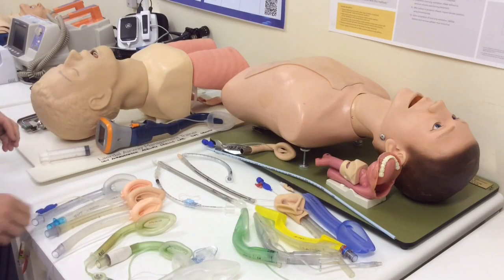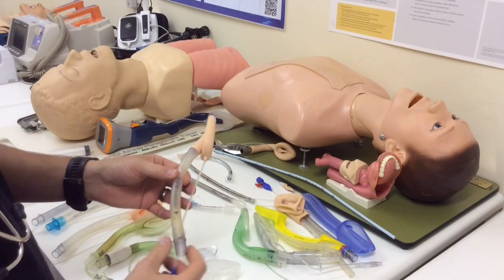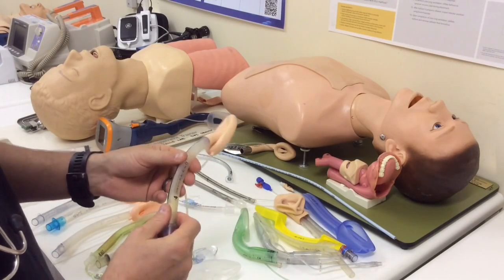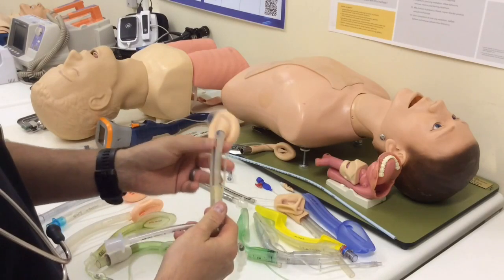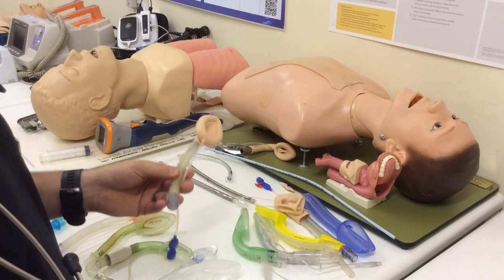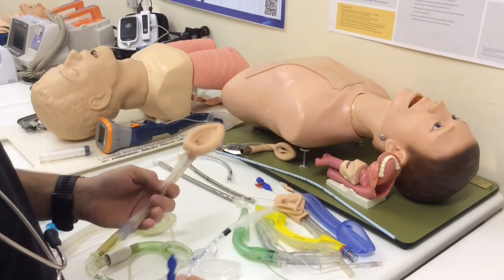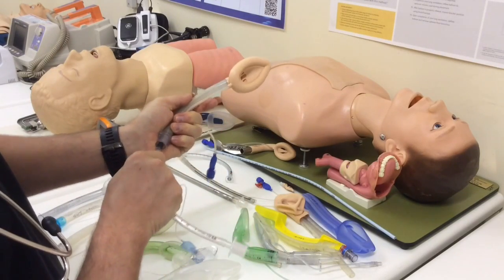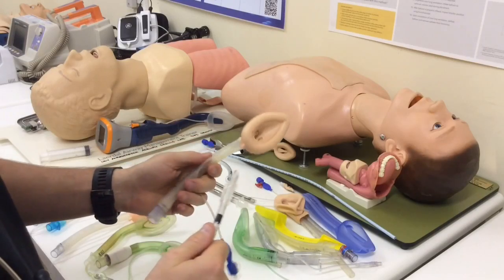Let's take an example of one of the older and very well-known supraglottics — the classic LMA. The classic LMA was never designed specifically with intubation in mind, and although it works very effectively for patient ventilation, getting an endotracheal tube through here can be a bit of a problem. This is a size 4 classic LMA, for a patient of body weight 50 to 70 kilos. For that kind of patient — say a 60-kilo patient, a small adult — I'm probably going to want a size 7 or 7.5 endotracheal tube. Here's a size 6 ET tube from our theatres, and you can see that I can't actually get this size 6 to go through this LMA, and I might also struggle with the epiglottic bars at the end.